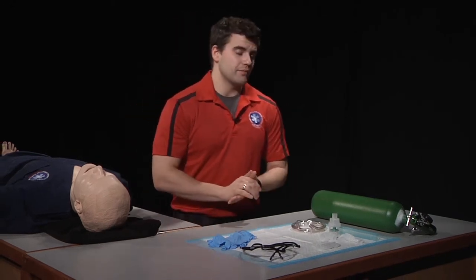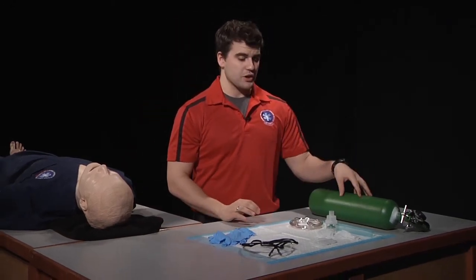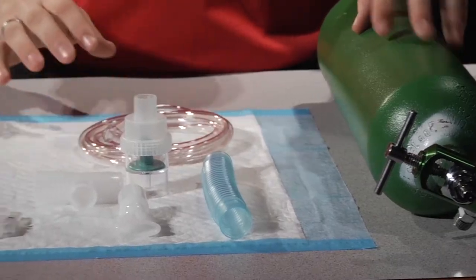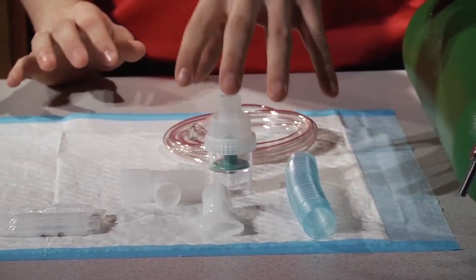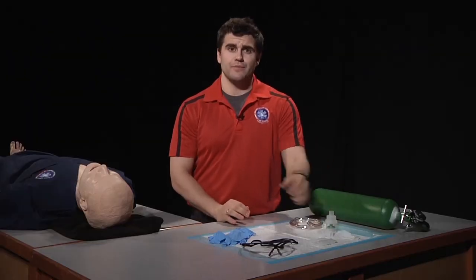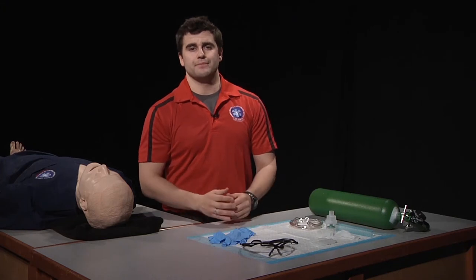After that, we want to assemble our equipment. The equipment that we'll need for this skill is an oxygen tank, oxygen tubing, a nebulizing unit, our medication, and our personal protective equipment.